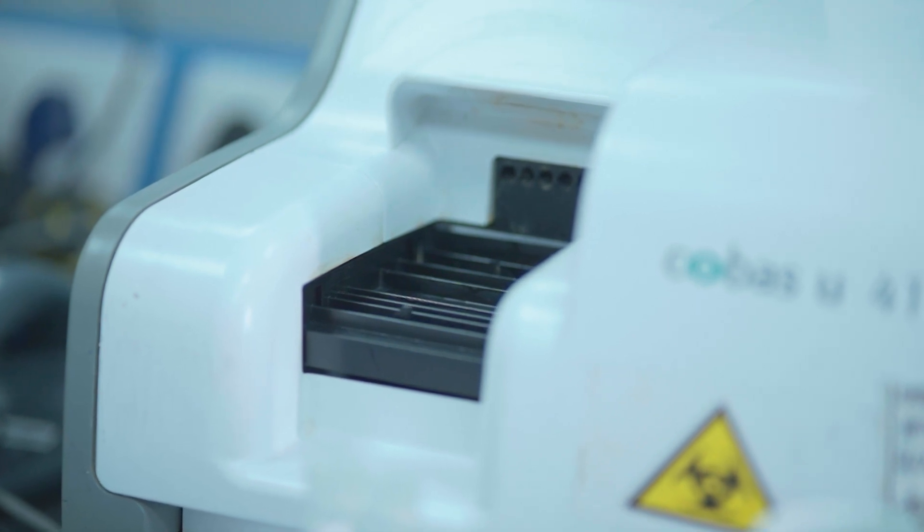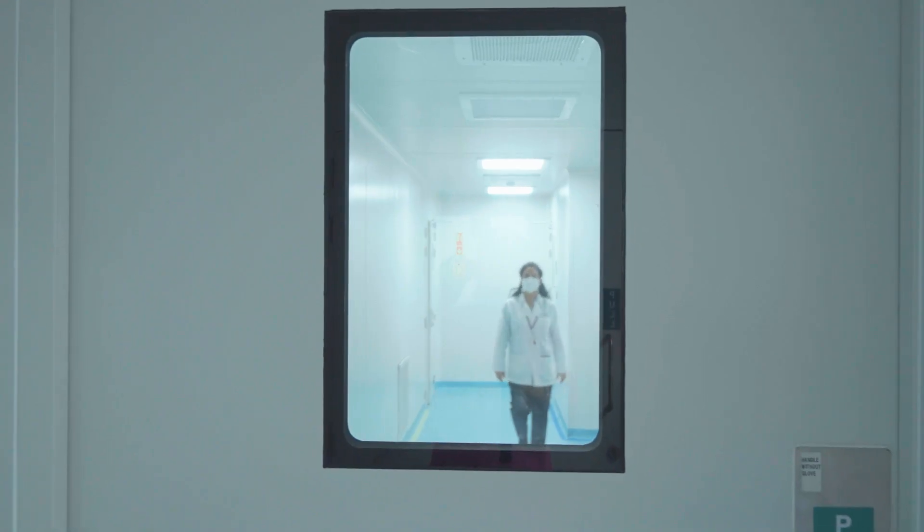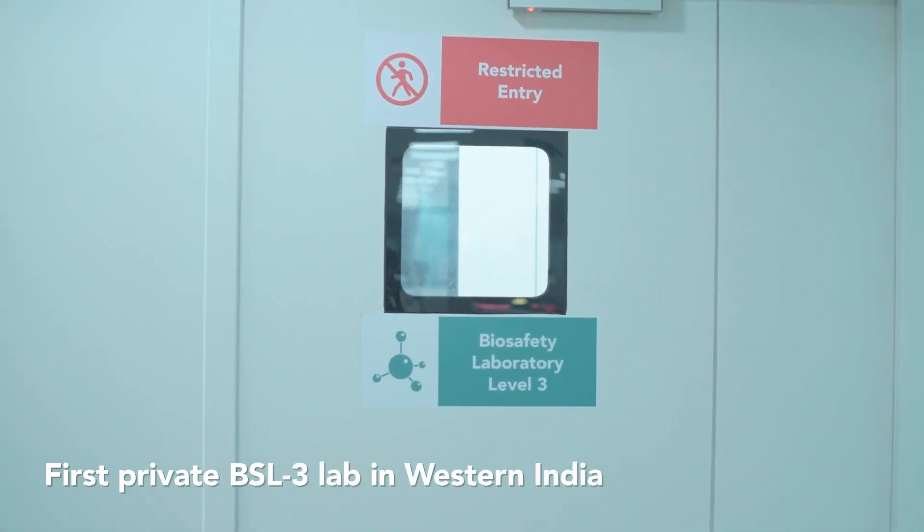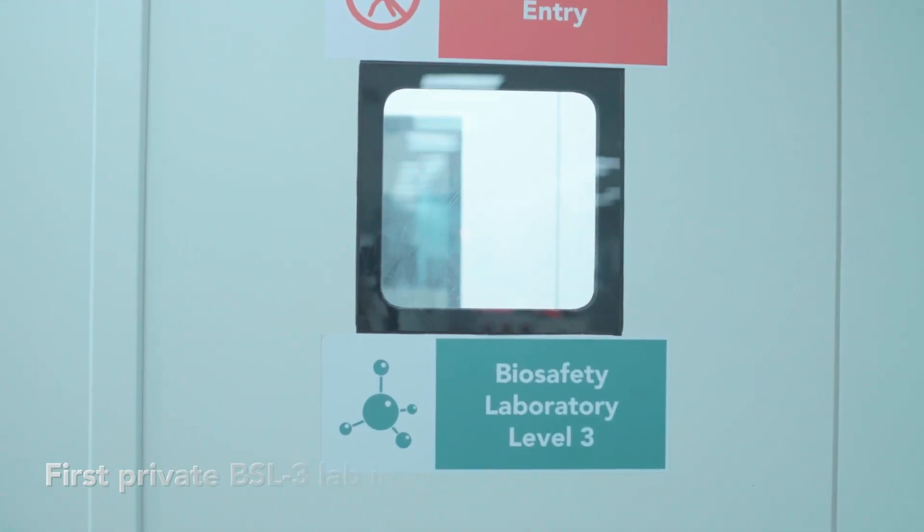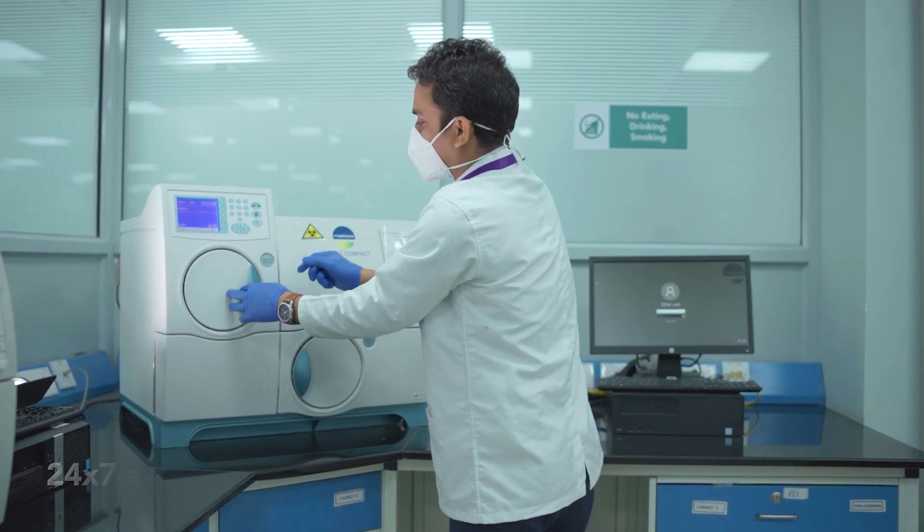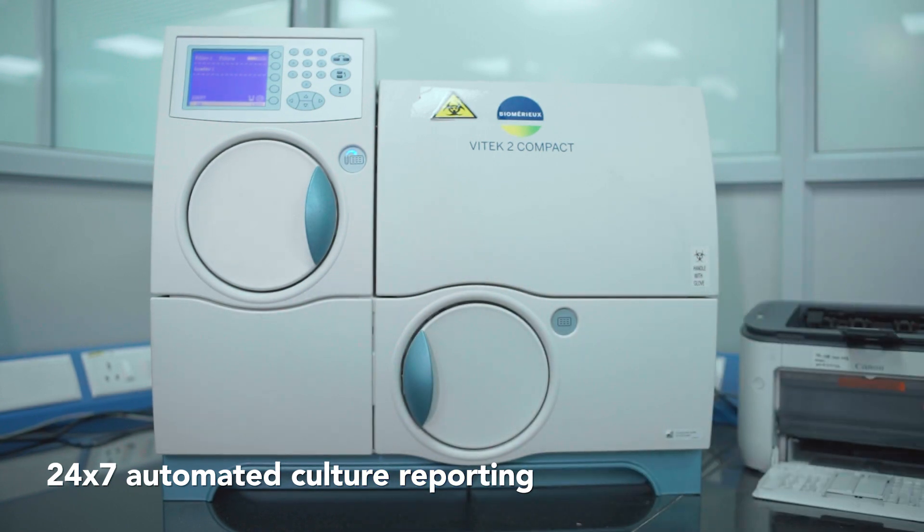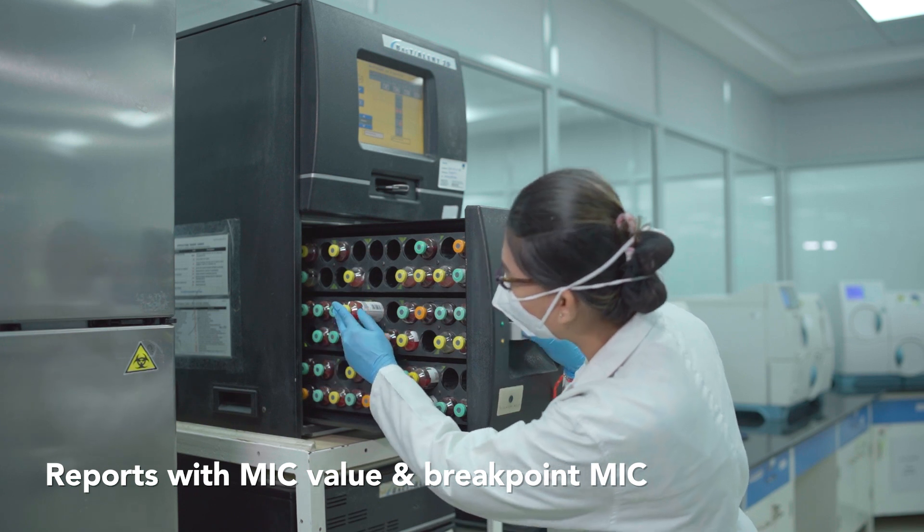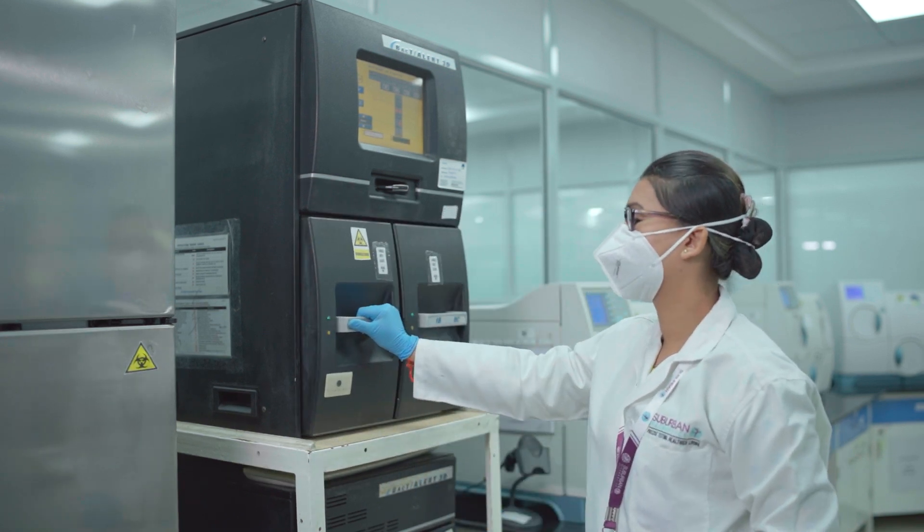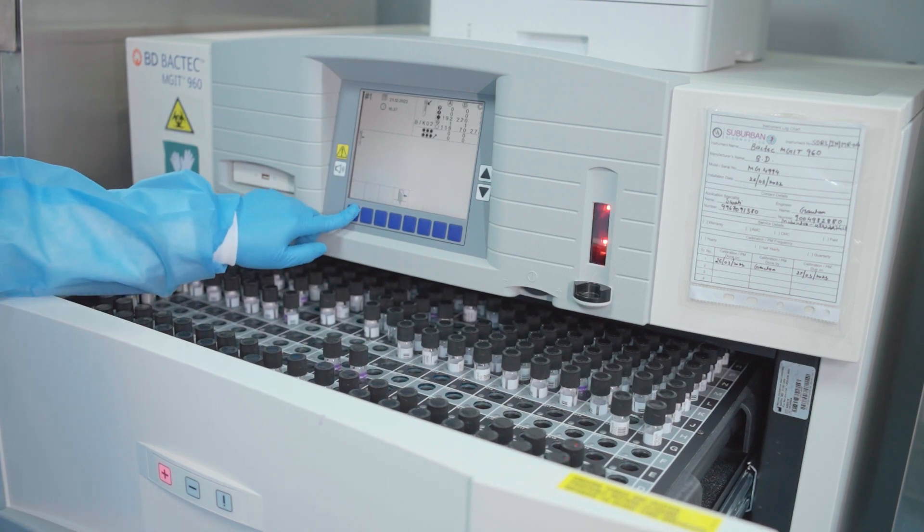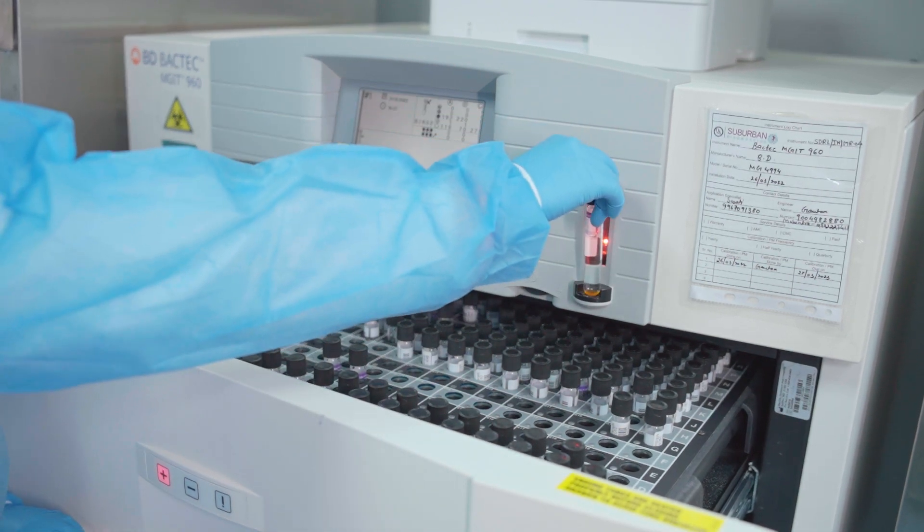Our microbiology and molecular departments are housed in a BSL-3 biocontainment facility. Our microbiology lab has a 24-7 automated culture reporting process with multiple interim reports to keep the physician updated regarding the status of the culture. Our automated TB culture platform can perform up to 960 cultures simultaneously.